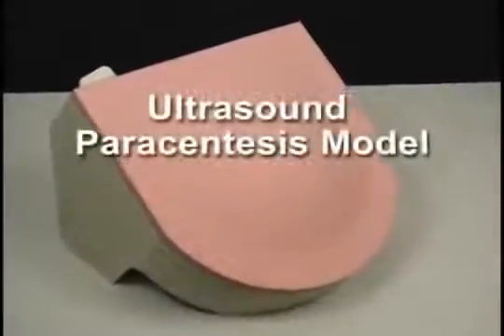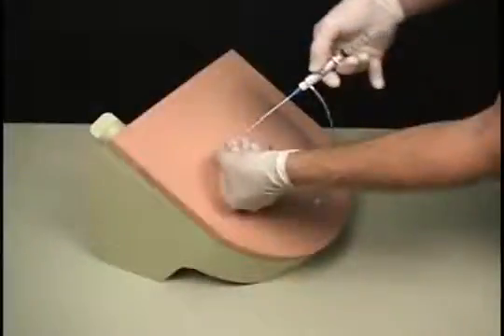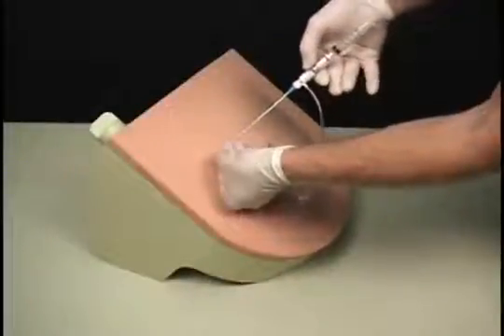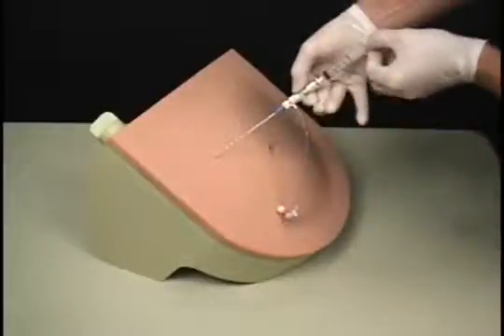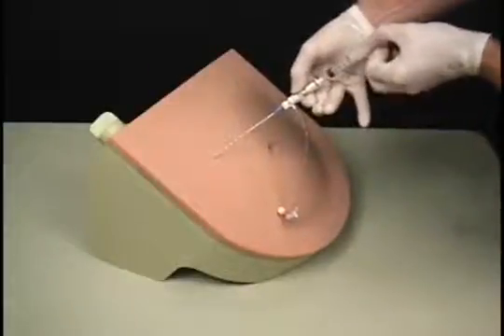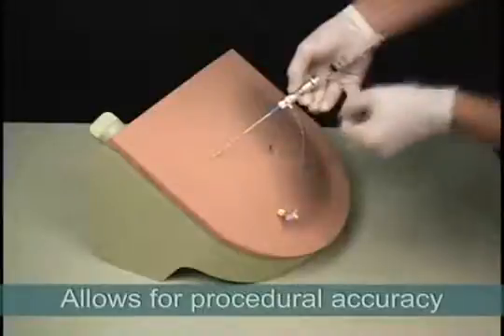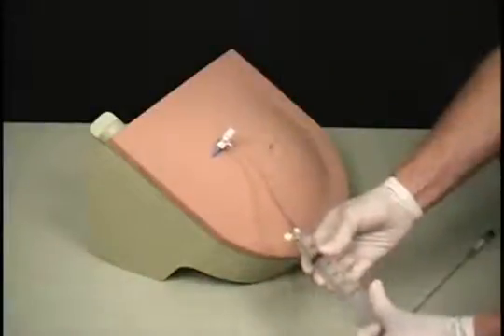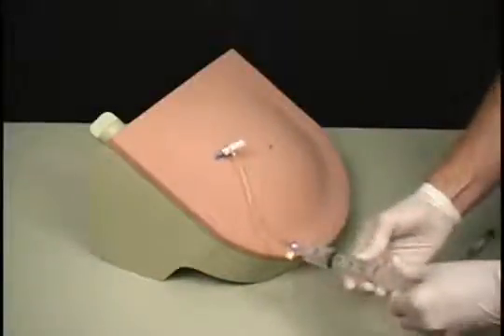Simulab's Ultrasound Paracentesis Model is a realistic soft tissue model that allows for procedural accuracy when performing the paracentesis. The anatomically correct model allows the user to drain fluid from the peritoneal cavity in the abdomen using either external landmarks or with ultrasound guidance.